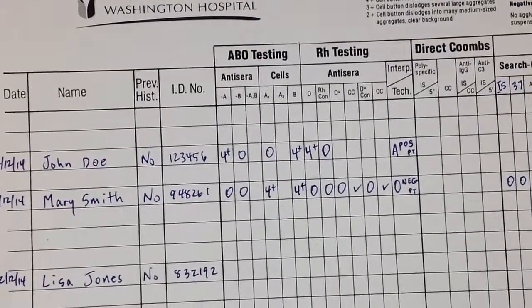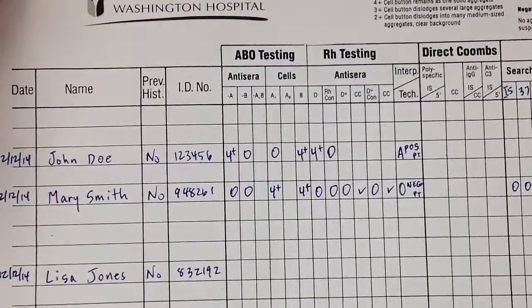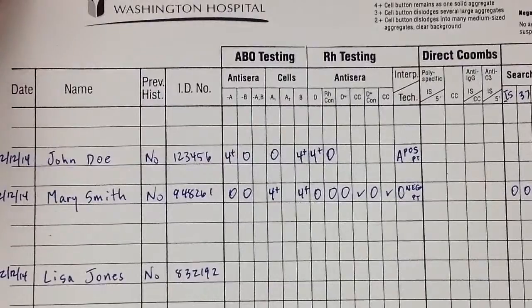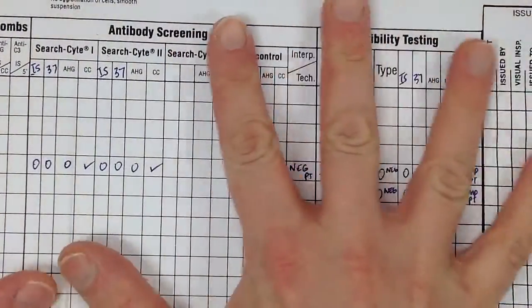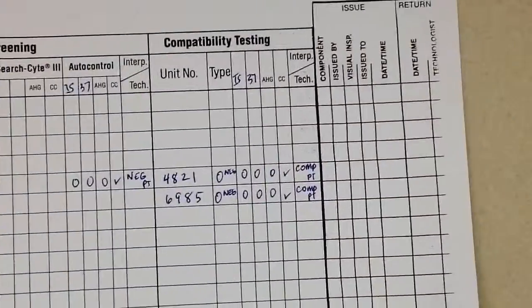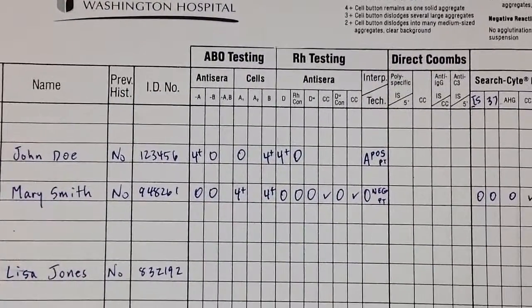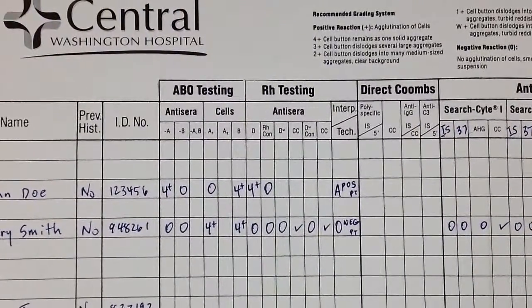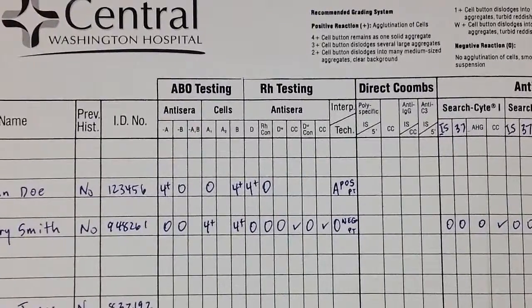In this video we are going to take a look at a blood bank record log where you record your results when performing blood bank testing. This is a very large document - about two hands wide - so I'm going to go through it just bit by bit. Every document may look different, but this will give you an idea of what you can expect from the record log.